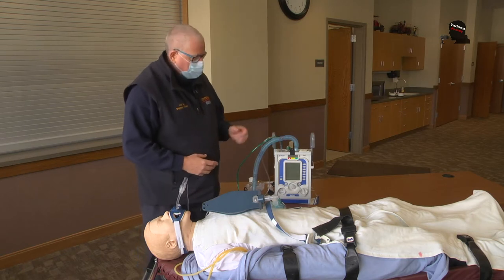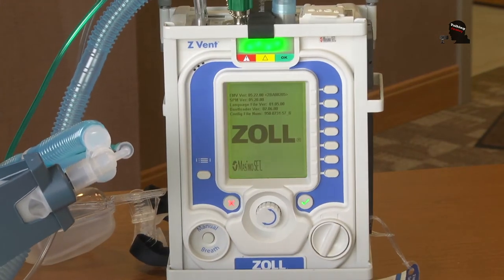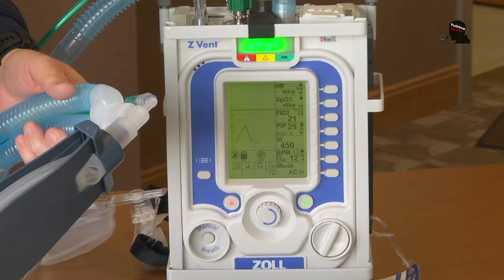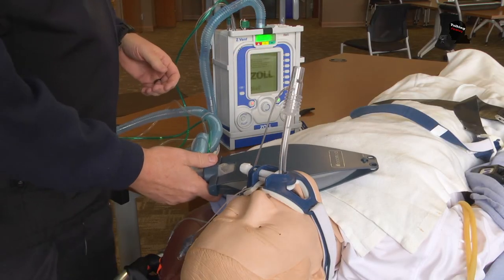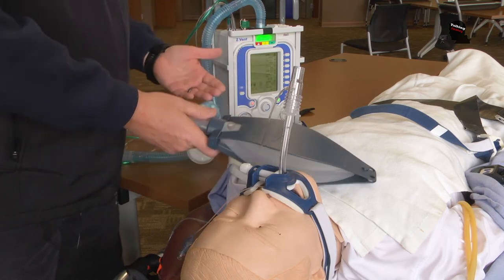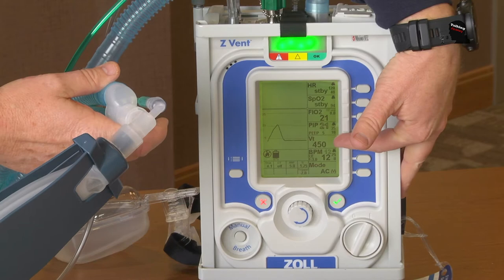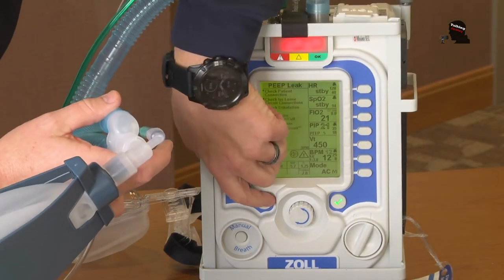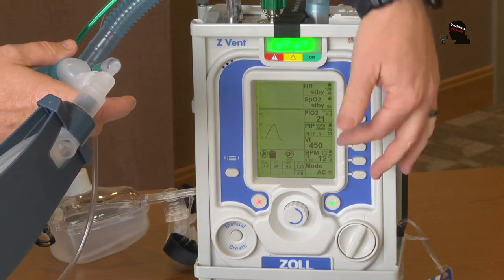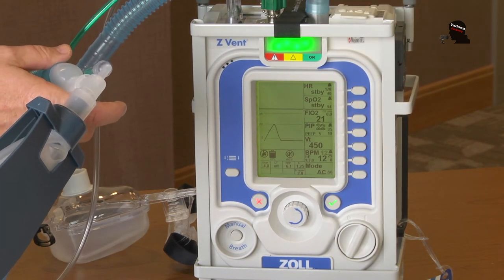To demonstrate the vent — we'll turn it on here, this will be the initial startup, and the vent will run through a self-check. We have our test lung on so it's breathing into some sort of bellows in order for it not to alarm. On the display it will show the tidal volume, which we can adjust based on patient weight and height — we have a chart in the ambulance for that. We can also set the breath rate; we have it set at 12, and we can adjust that based on the patient's end tidal or pulse oximetry.